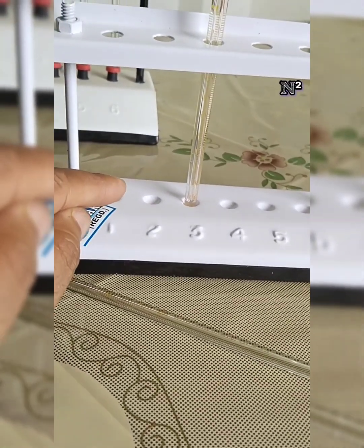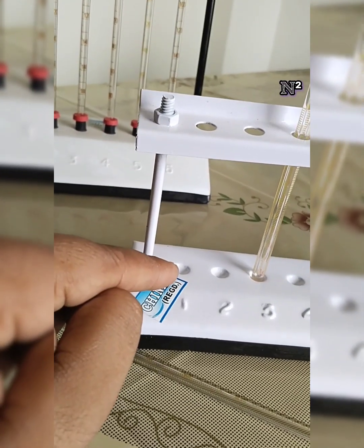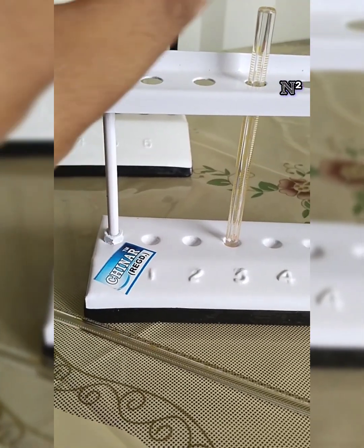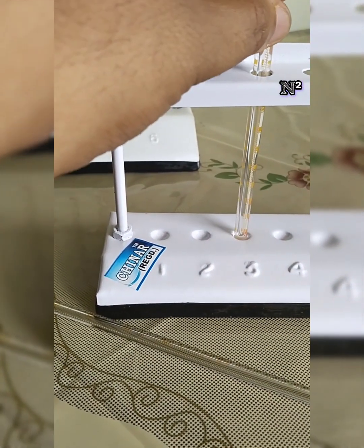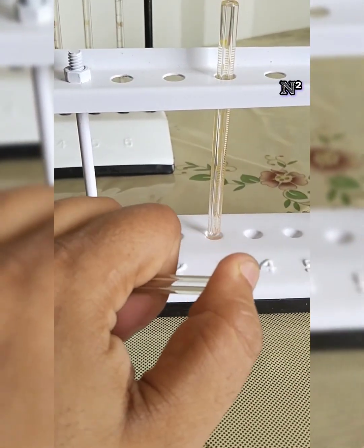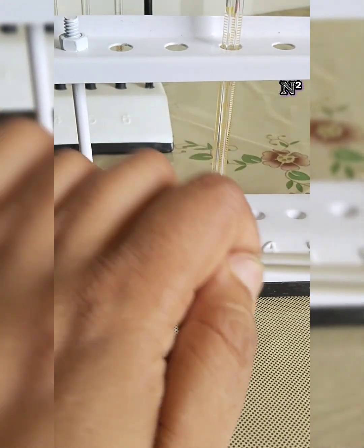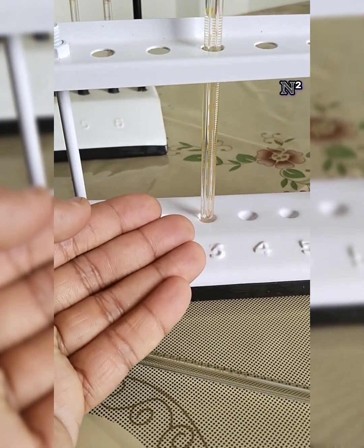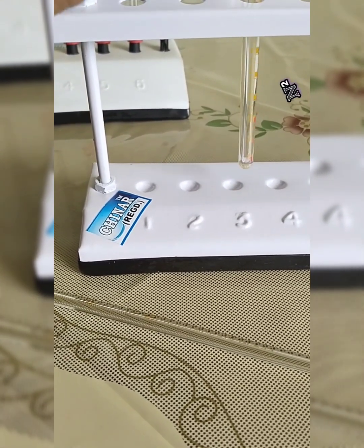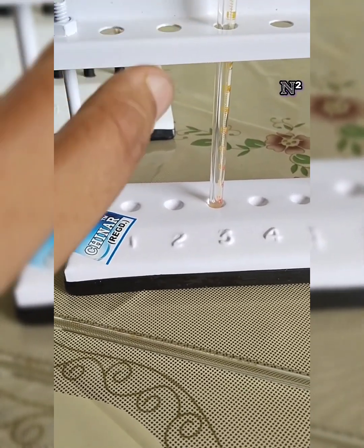But the distinguishing feature between the Westergren's and the Wintrobe's is that there is no rubber cushion in the base. There is just a concave depression, because in this experiment we don't need to create negative suction pressure with the help of the thumb. Or there is no gravity effect as we open the ends, because this one end is already closed, so why do we need a rubber cushion? So we place the tube in any one of the slots, and we observe the experiment.